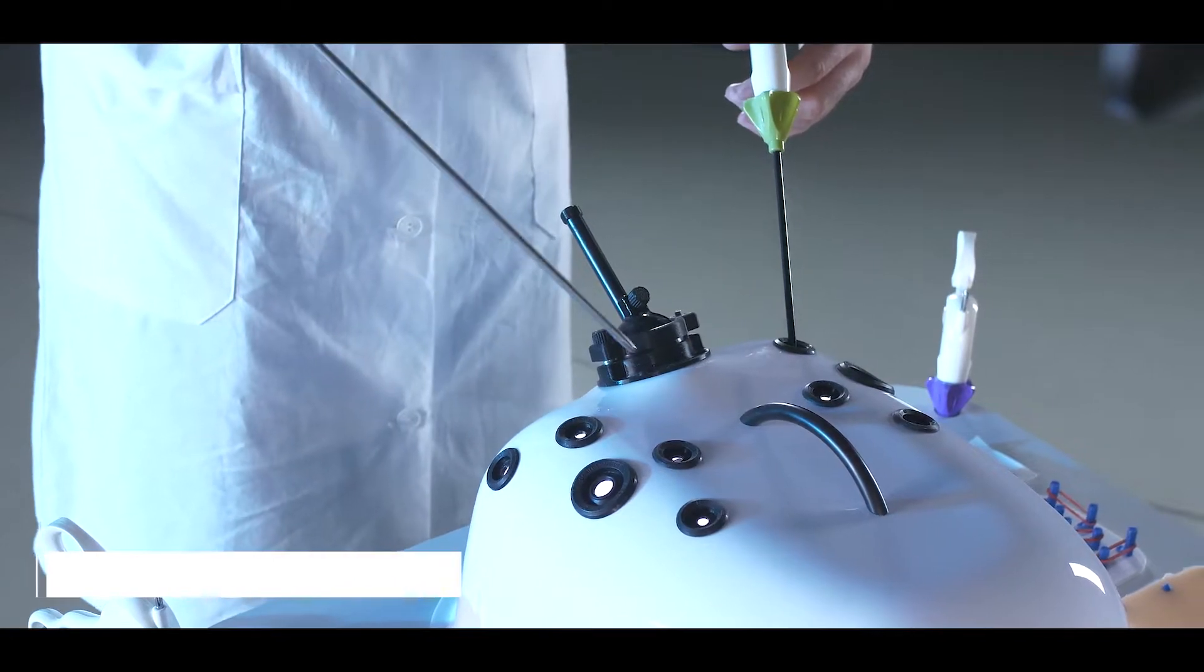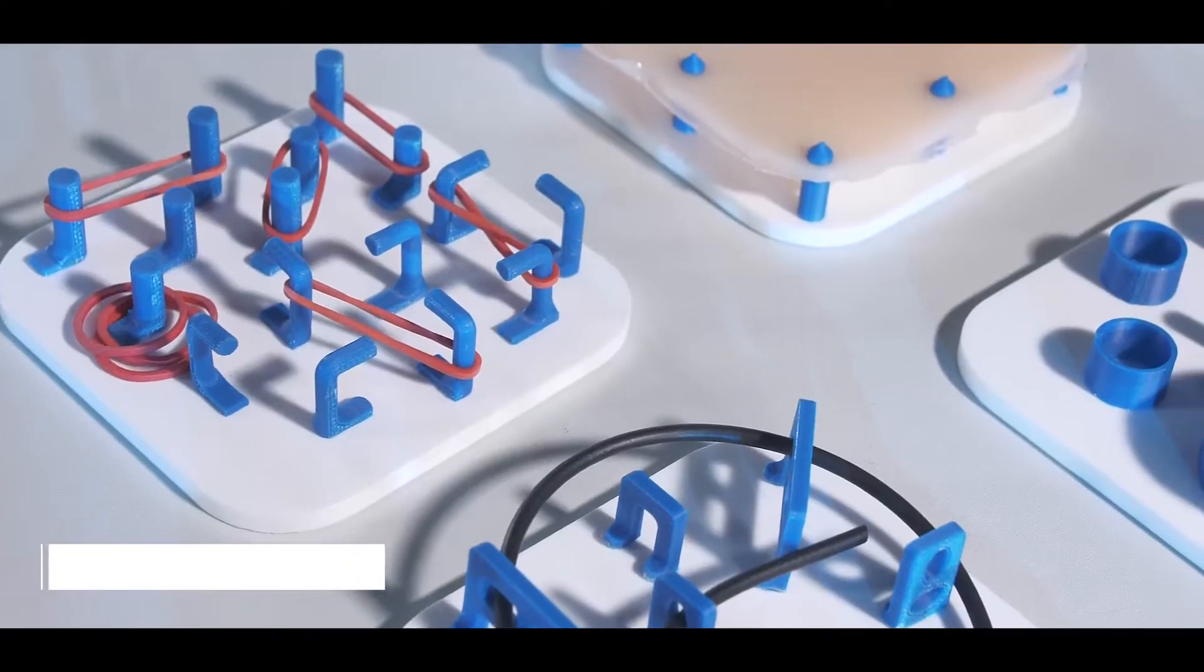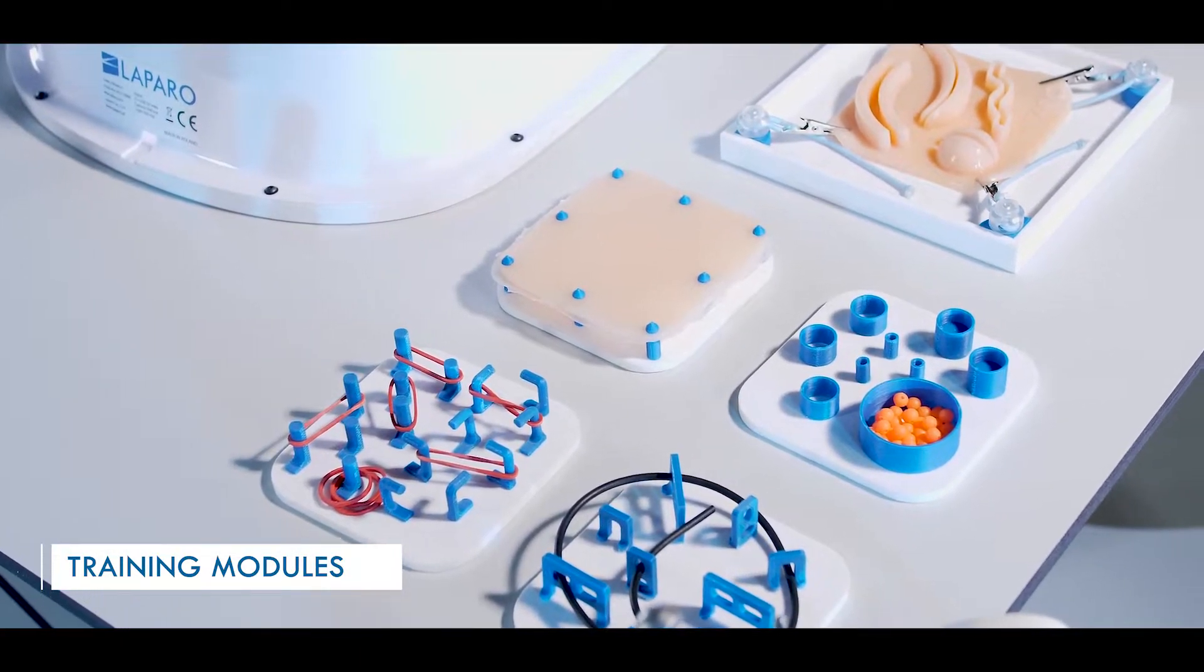We have many properly placed 5mm and 10mm instrument inserts. Different modules allow the training of both basic and advanced surgical skills.